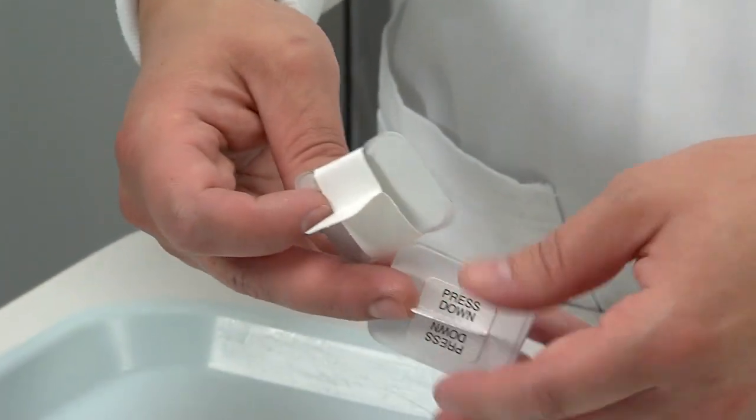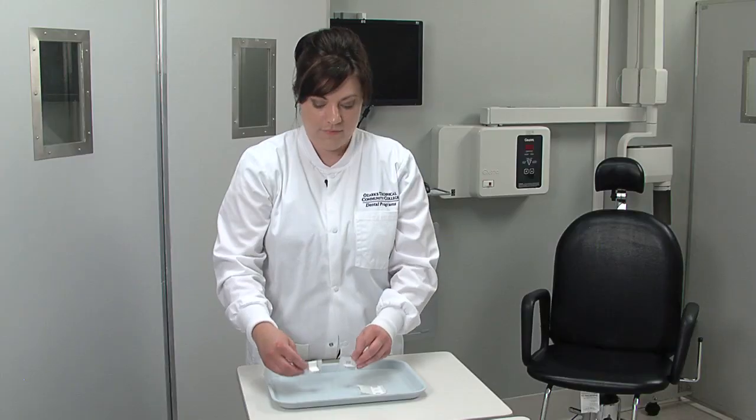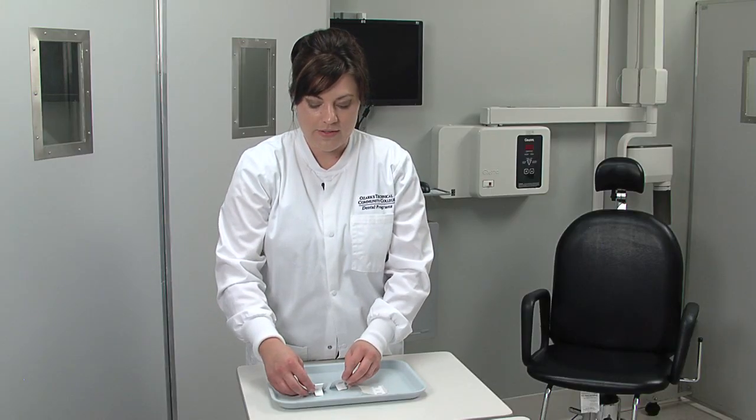You have another type of bite wing film holder ready to go. Those are the bite wing loop and the bite wing tab.